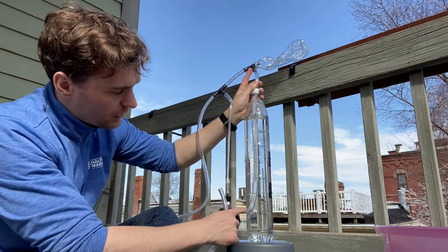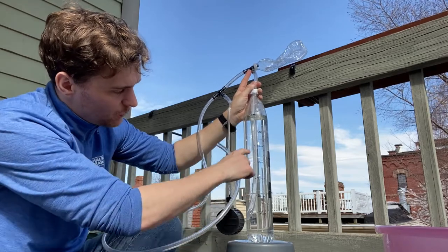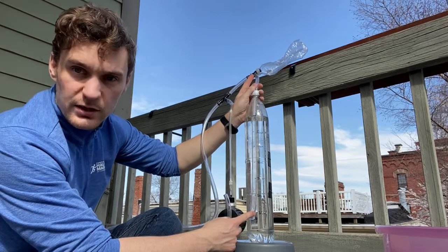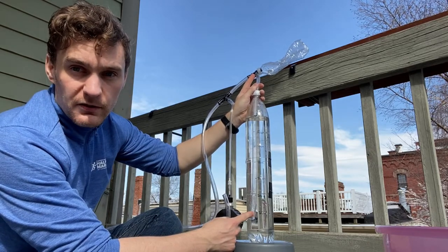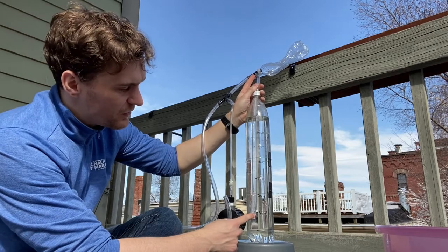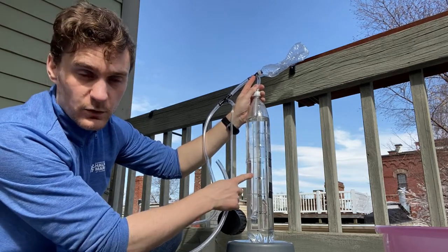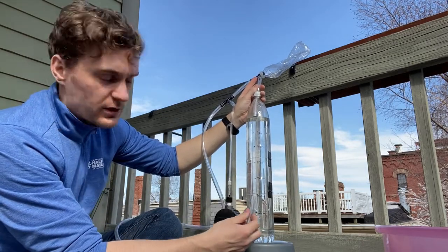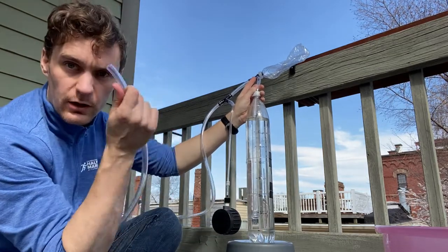It's not possible to apply an overpressure to the lung, because when you apply too much pressure the water comes all the way out of this tube and starts bubbling out. In this case the maximum pressure I can apply is 35 centimeters of water, because that's how far down the tube is. If I move the tube up to 20 centimeters, the max is 20; if I move it down to 50, the max is 50 centimeters of water.